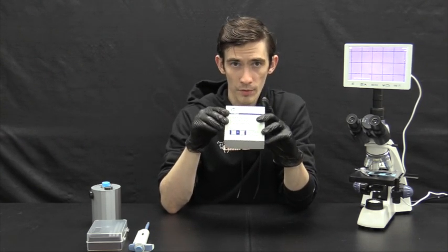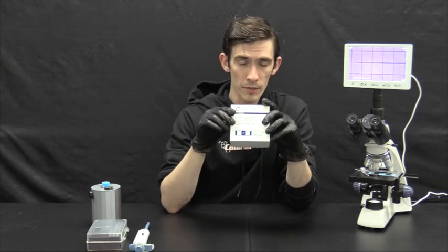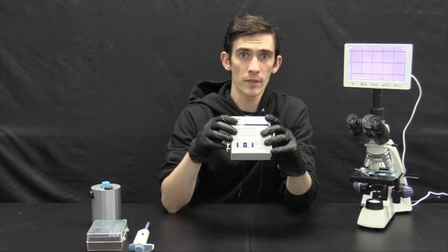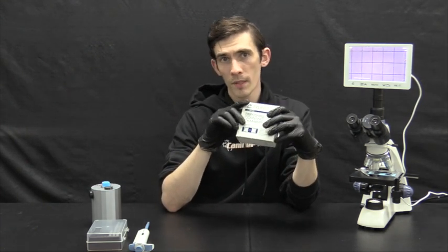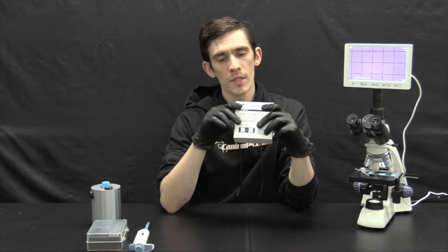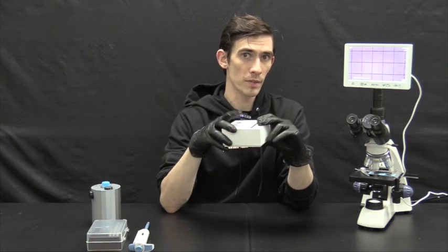So it's not going to give you a measurement on progressive motility, regular motility versus morphologically abnormal. This is just going to give you the total count of everything that exists in there. More advanced systems such as the iSperm and other CASA machines will perform those measurements for you, but this one will just give you the total count of sperms.